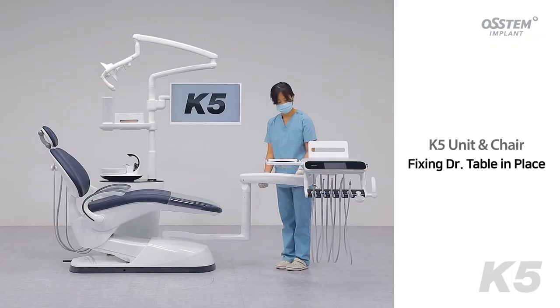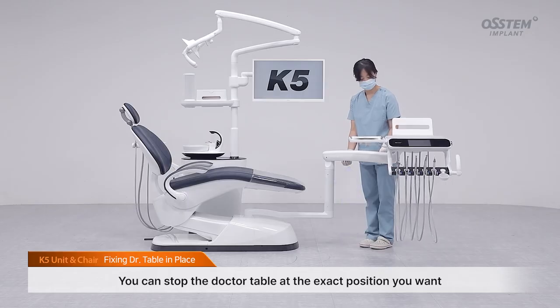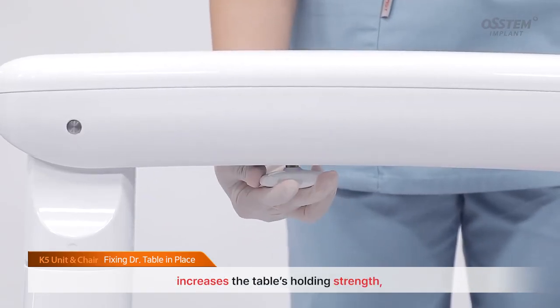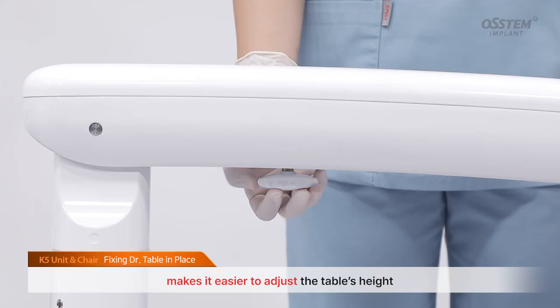Fixing doctor table in place. You can stop the doctor table at the exact position you want. Turning the knob under the balance arm clockwise increases the table's holding strength, and turning it counterclockwise makes it easier to adjust the table's height.